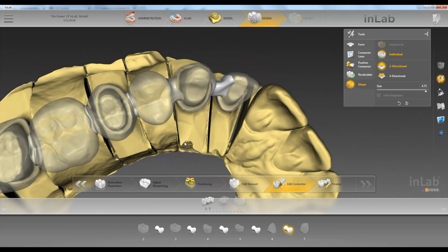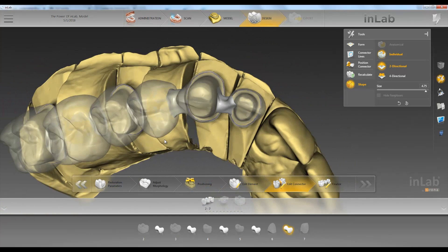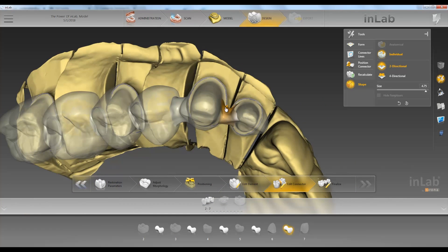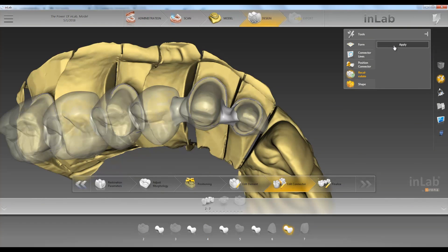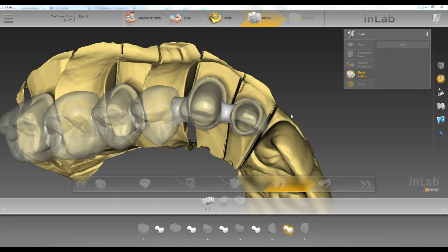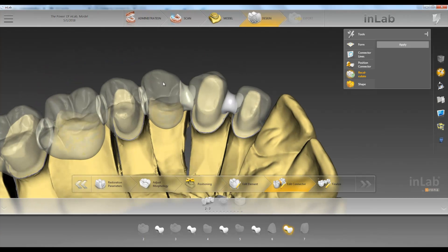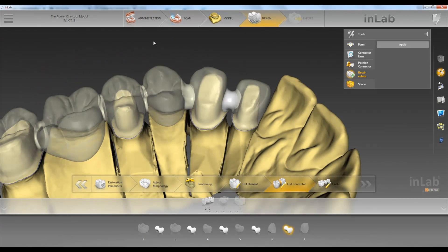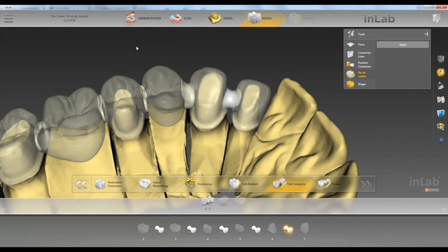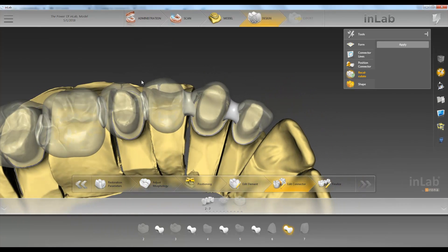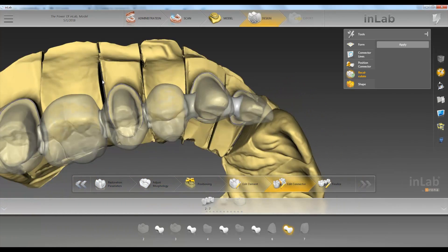The last tool we have is recalculate. Let's say we want to start from scratch — right click, click recalculate, and click apply. So these are our different connector tools available in the edit connector step.